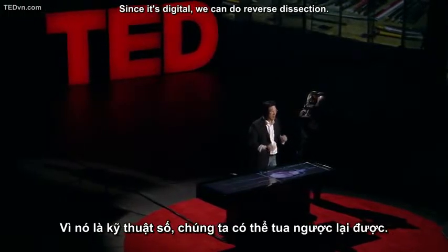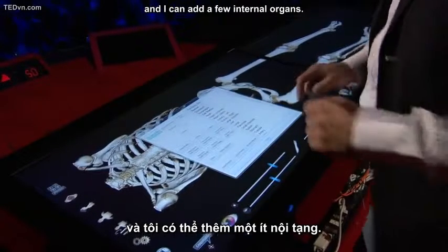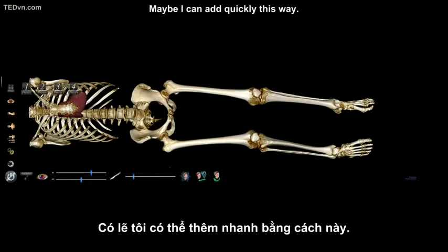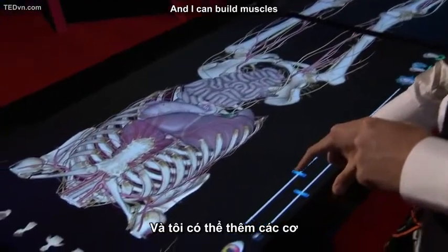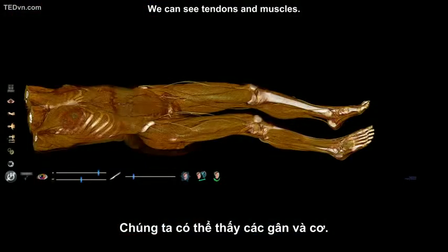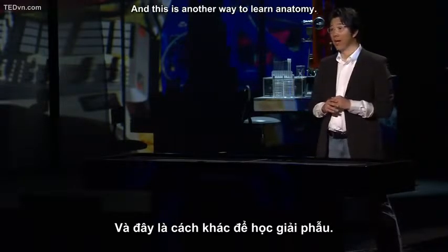dissection. Since it's digital, we can do reverse dissection. So let me show you. I'm going to start with the skeletal structure. And I can add a few internal organs. Yep. Maybe I can add quickly this way. And I can build muscles gradually. Just like that. We can see tendons and muscles. Wish I could build my muscle this fast. And this is another way to learn anatomy.